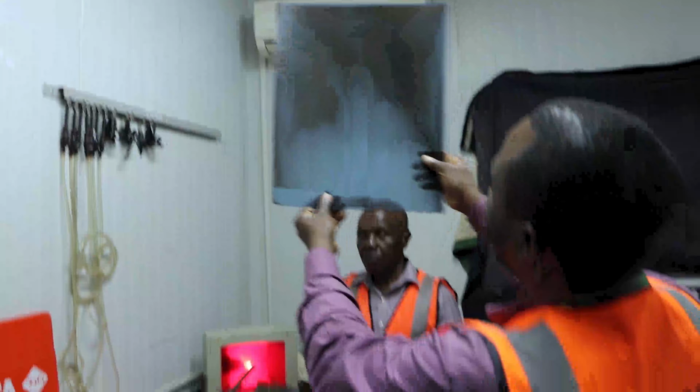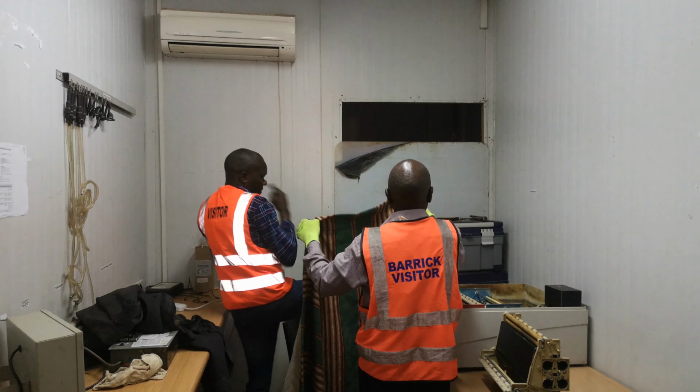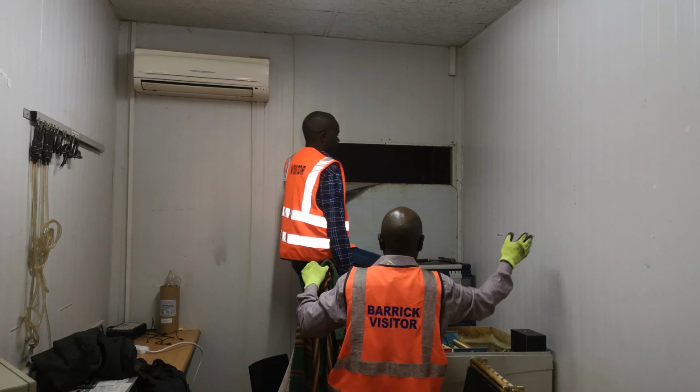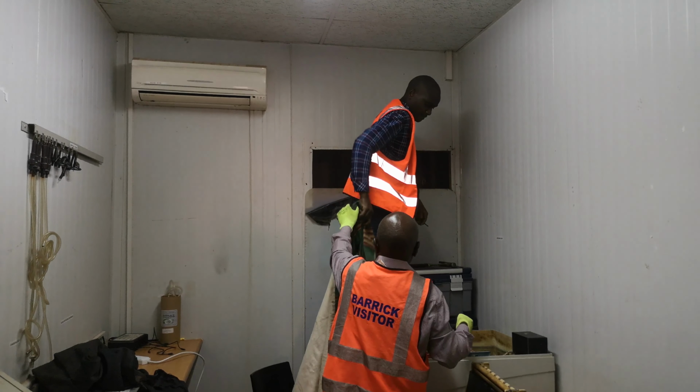Today, we explore what goes on in the darkroom where analog X-ray films are processed. It starts with the preparation of the room, sealing of all lighting points in the room by the operators. The red light, known as a safe light, which does not interfere with the production process, is the only light installed in the darkroom to help with some little visibility for the operators.